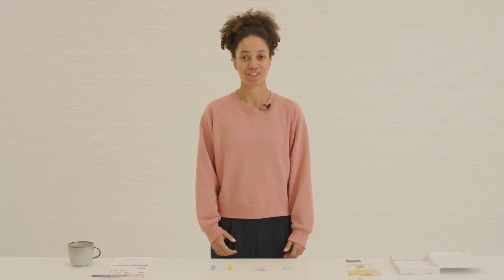Hello, I'm going to show you how to take a small blood sample and share some top tips that will make it even easier.